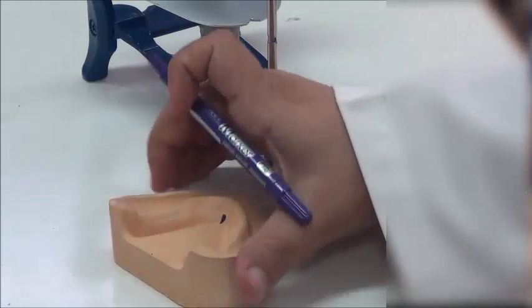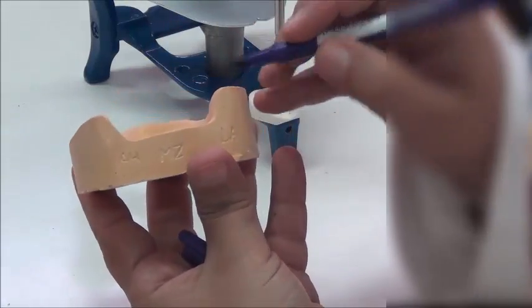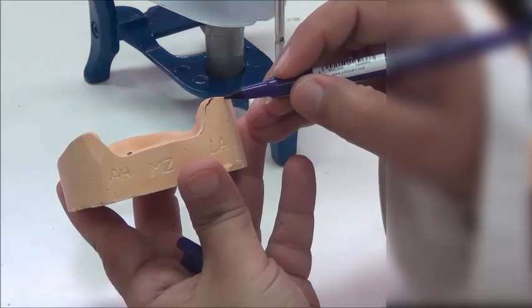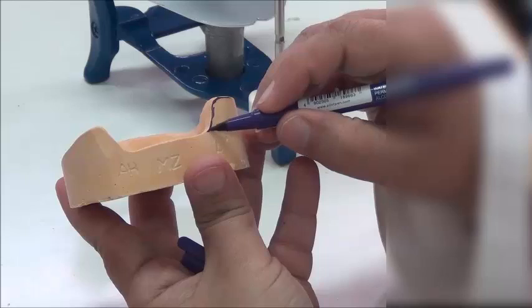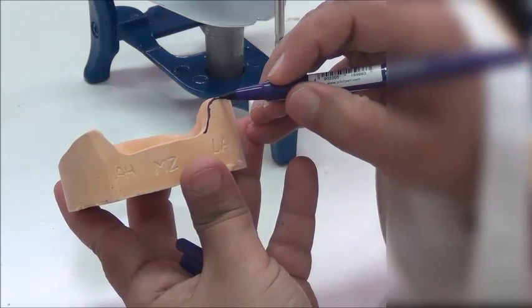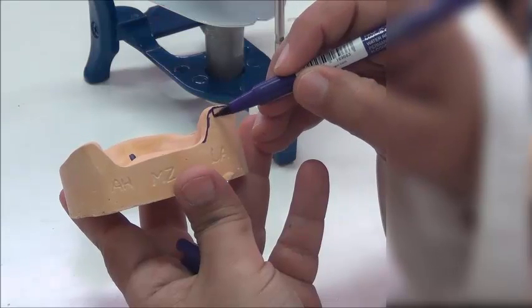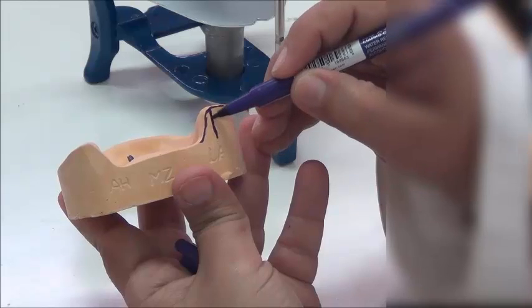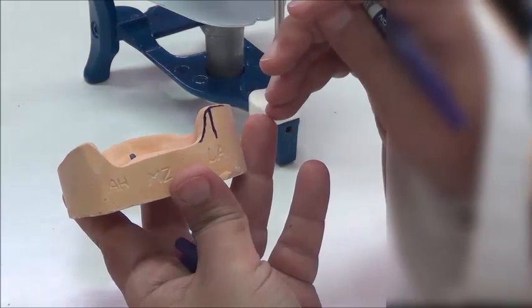We're going to draw now the posterior points. So the same way, we're going to just come back, draw the arcs around here. And here the lower, the retromolar pad is extending posteriorly on this cast, and this is where the maximum height of this arc is, where we have the retromolar pad from this residual ridge, which is the posterior structure for this ridge.